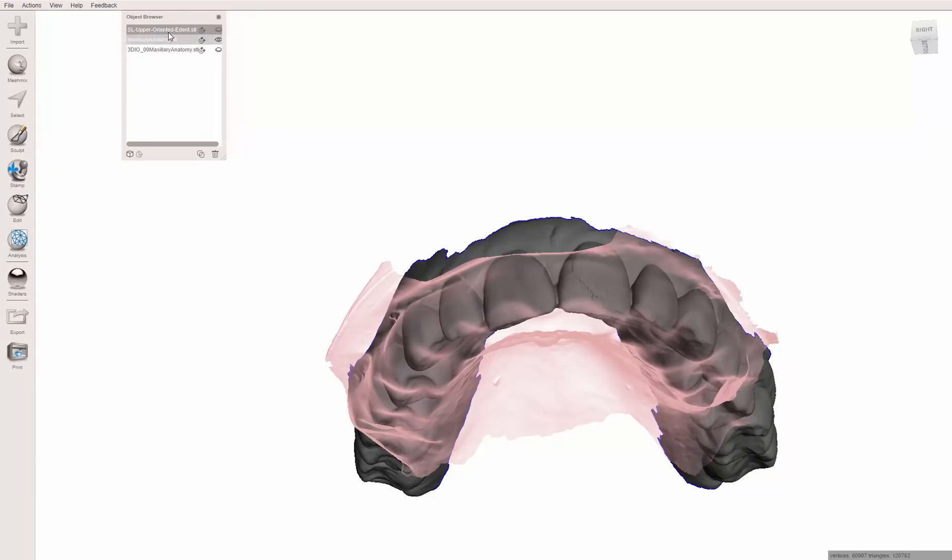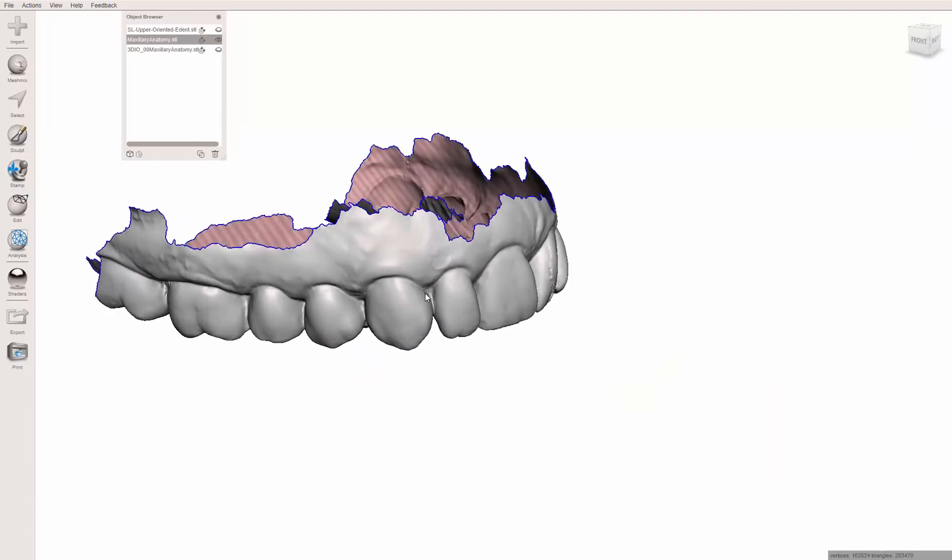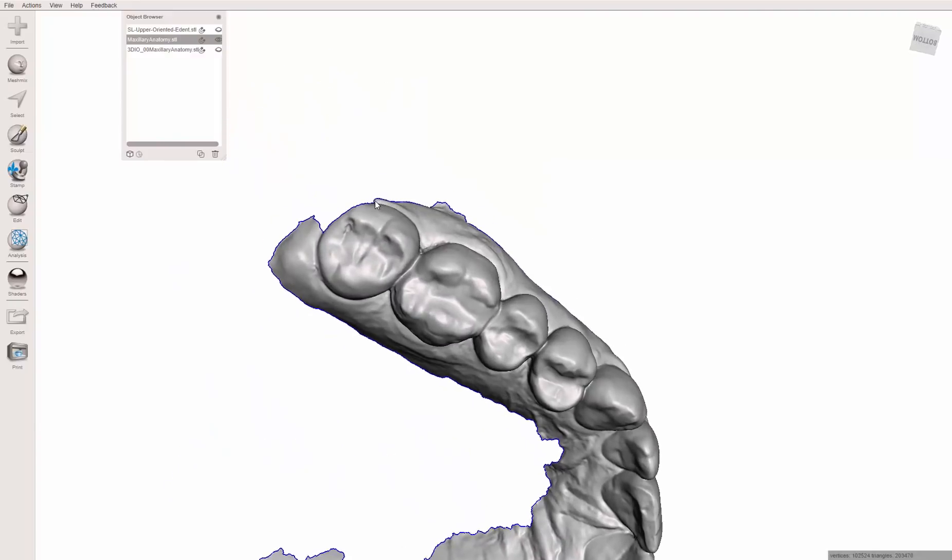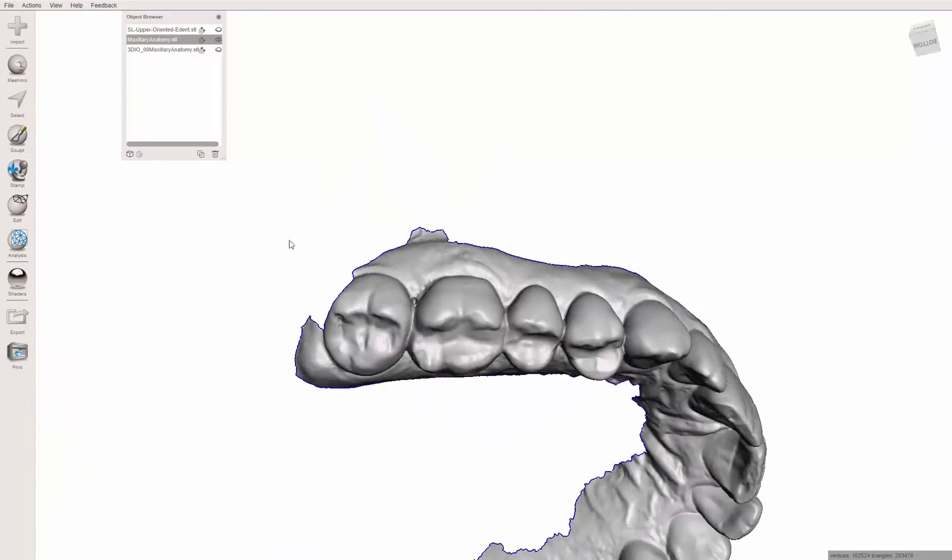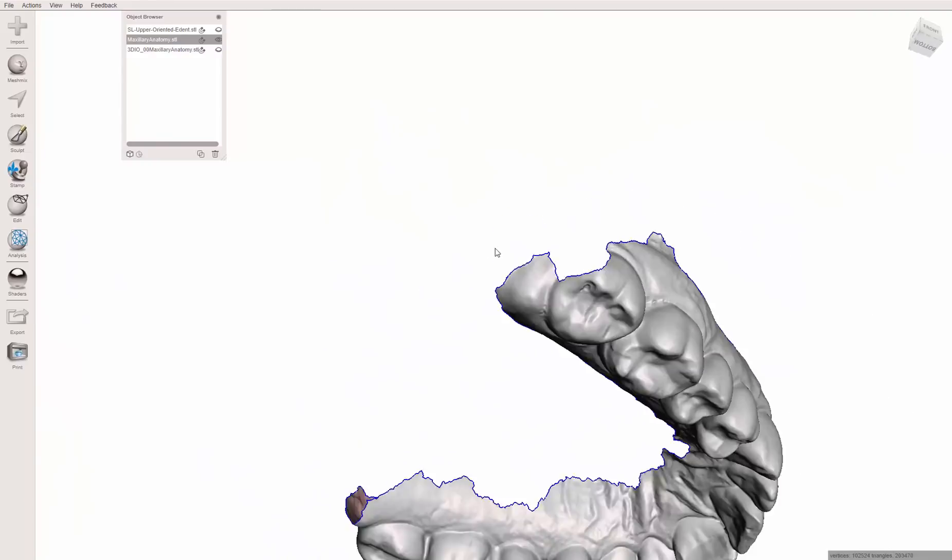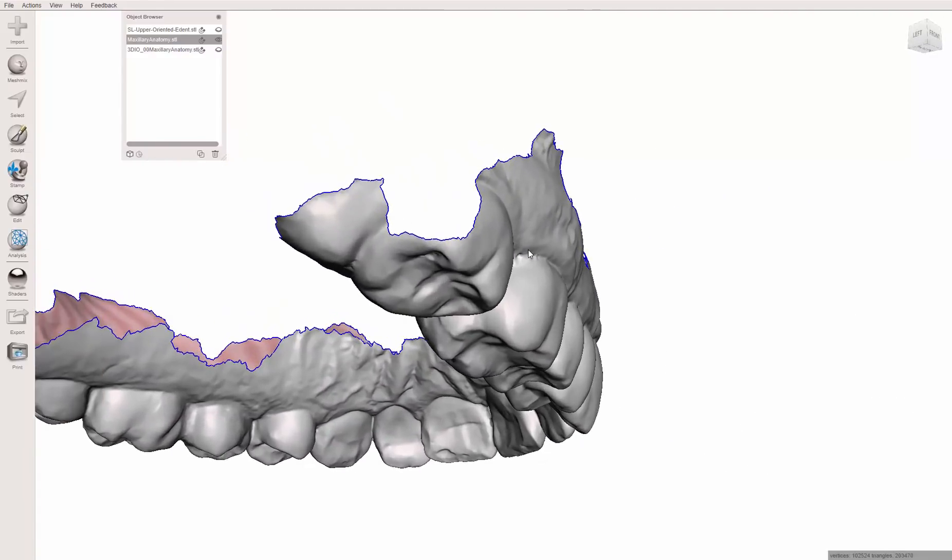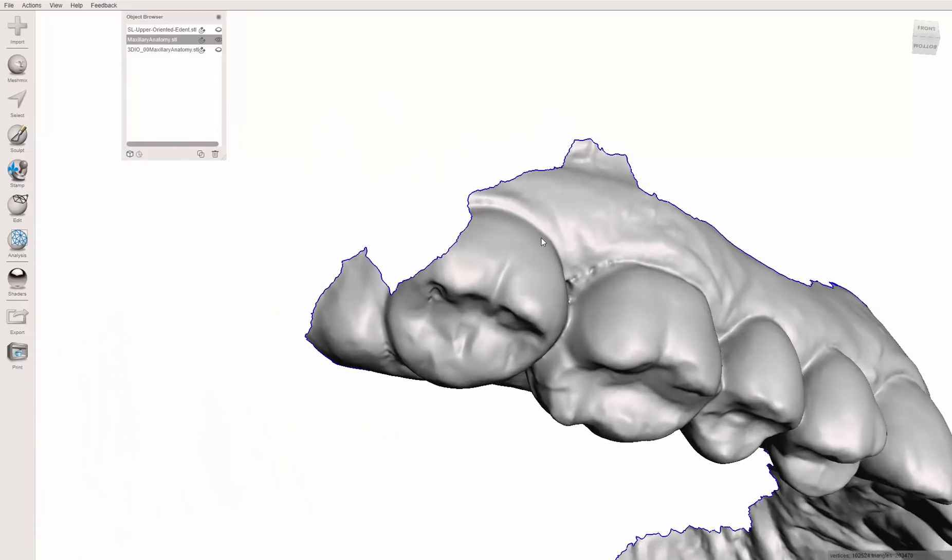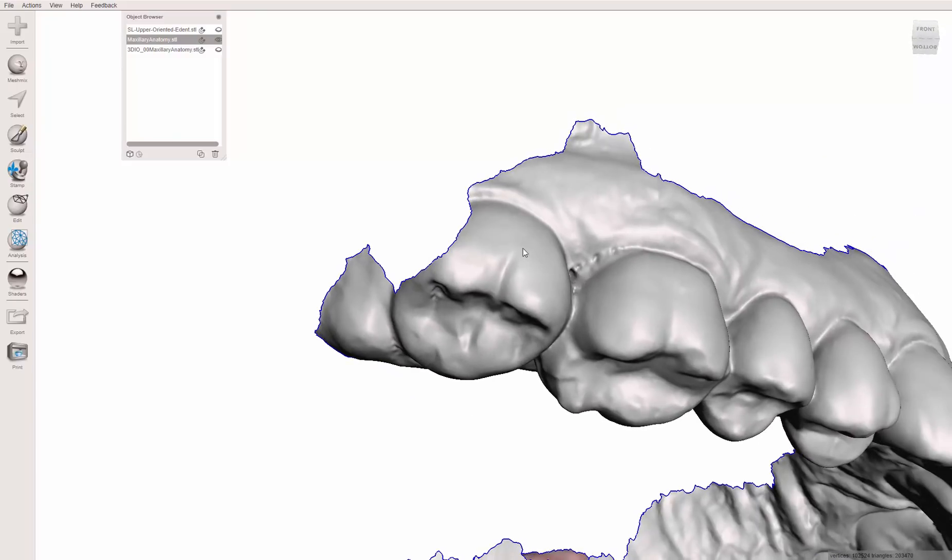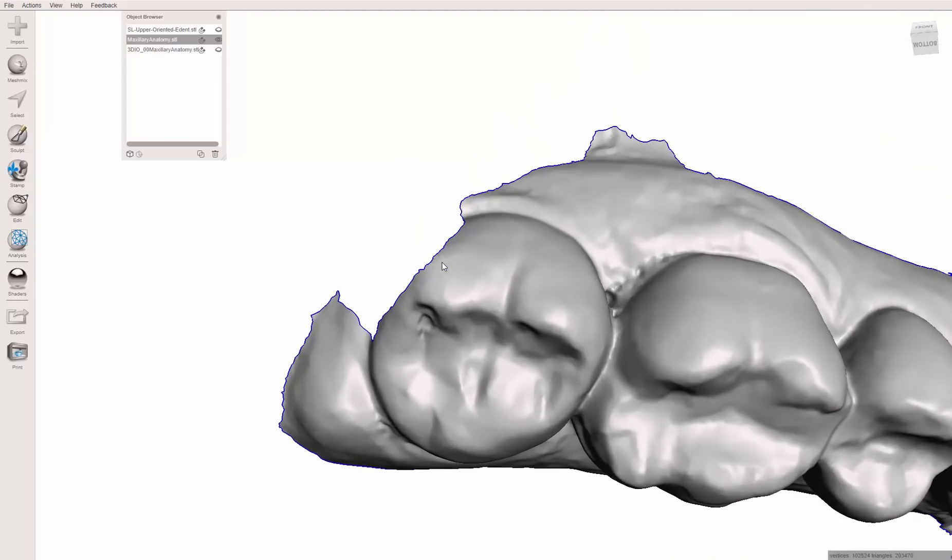So I'm going to show you this a couple more times, some smaller examples. This is from a case last weekend. I was teaching a course on digital ortho and I was just fiddling around while some people were working up this case, aligning these teeth. This is a little bit tricky one, I'll be honest. But if you want to, I like to have my aligners go all the way to the most posterior tooth. Some people will just say if they had this, just cut off the tray back here. That works. But if you can get it to wrap around the distal of the most posterior tooth, then you just have that much more retention.